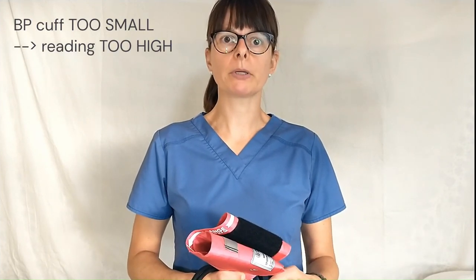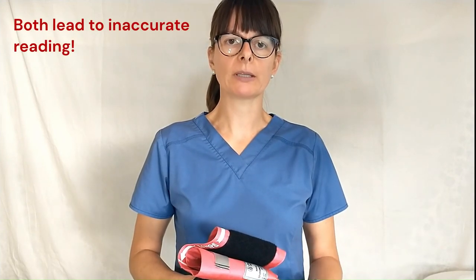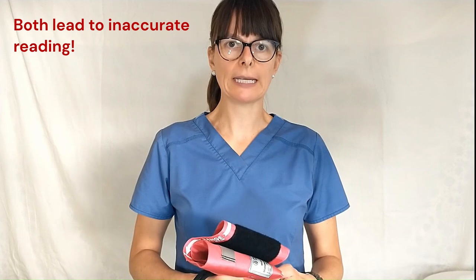If the blood pressure cuff is too small, the patient's blood pressure reading will be too high, and neither of those will give us an accurate reading of what the patient's blood pressure actually is.